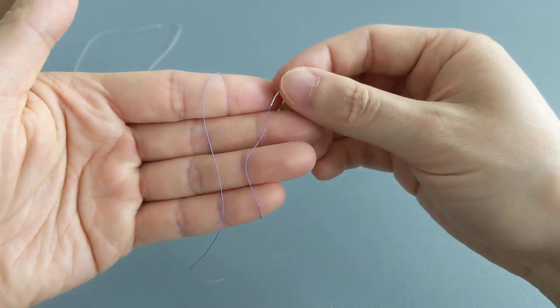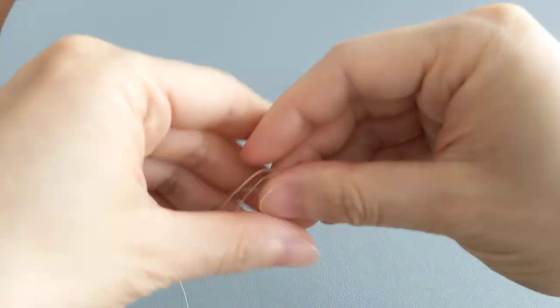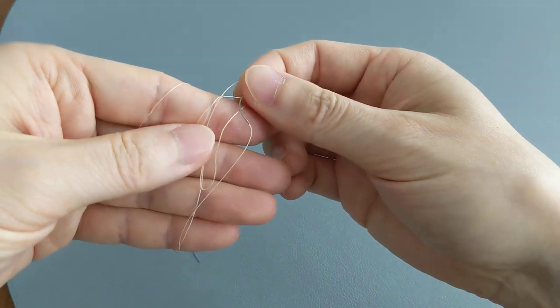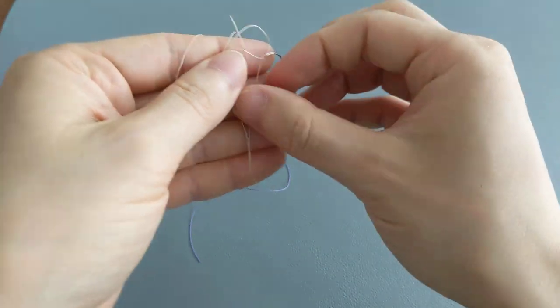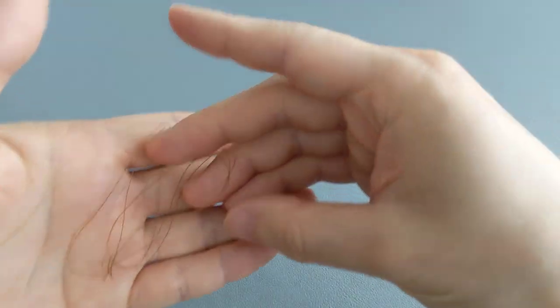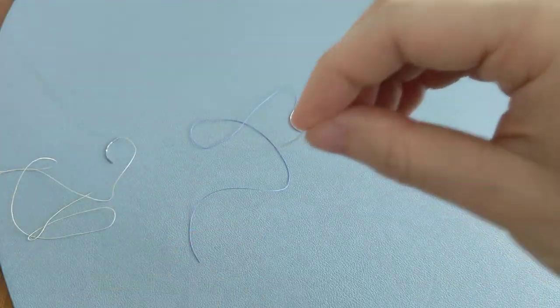This one is purple, and then this one here on the left is actually undyed, but it does kind of look a little white, maybe like an off-white color. And then here on the right, we have this one which is more of a gold color.